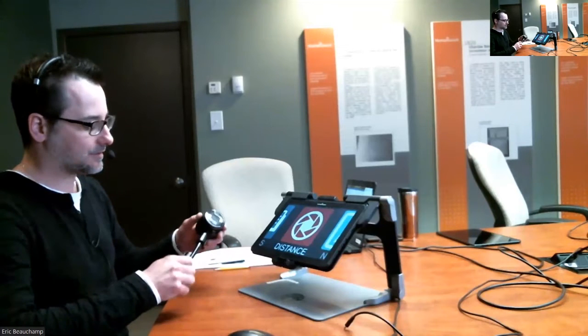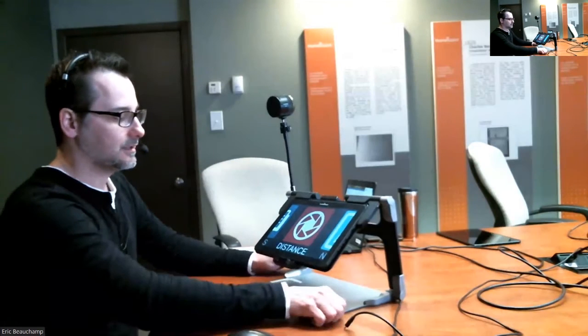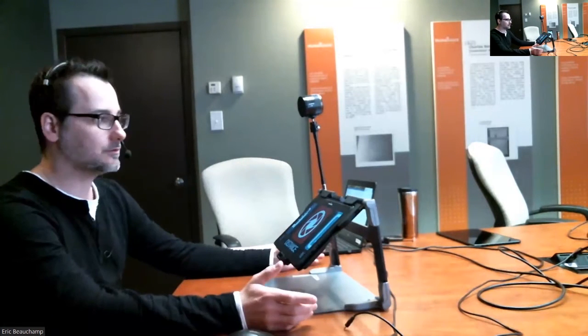So this is a bit of a setup. If you're a bit lost, you can refer to this video, and we do this setup with you, and you should be ready to go afterwards.